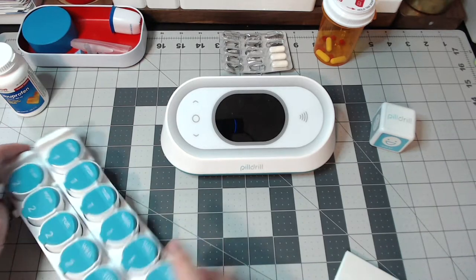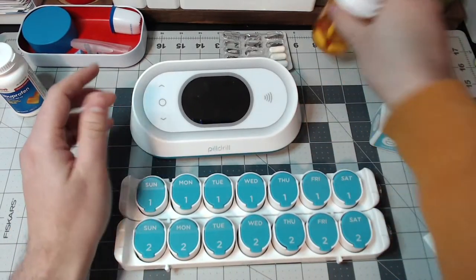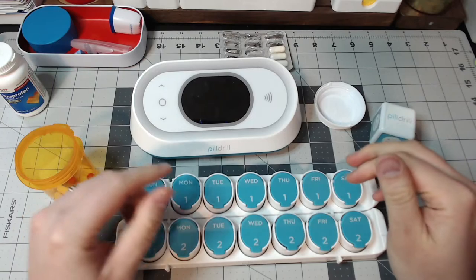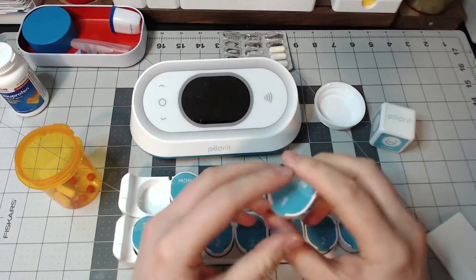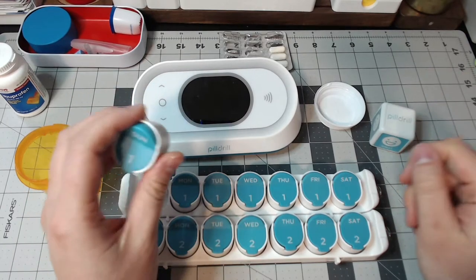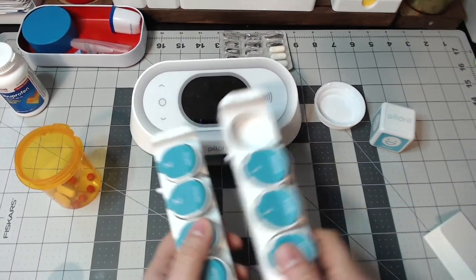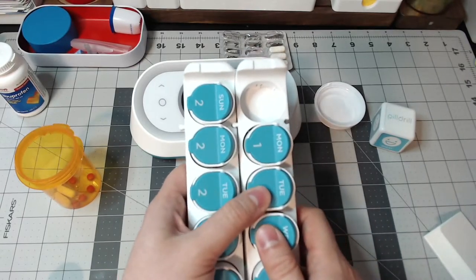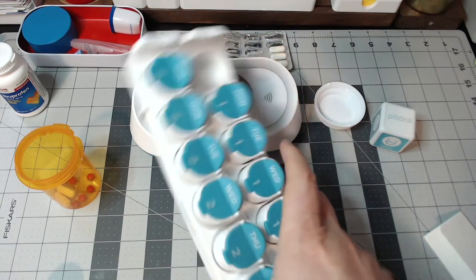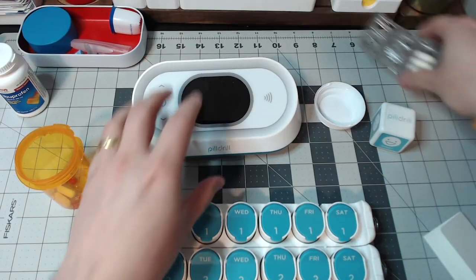What you would then do is use this as basically a medication tray. How this works is you would set this up on a weekly basis. Each one is tied to a day — Sunday, Monday, Tuesday, Wednesday, Thursday, Friday, Saturday. So you could assume this one would be the AM and this one would be the PM. As you saw before, you could buy more of these and they could basically hook up to each other — they attach like this, slide together, and lock. You have the option to add more as needed, so you could do three times a day or up to four times a day. For the average person, AM and PM is what you basically need.